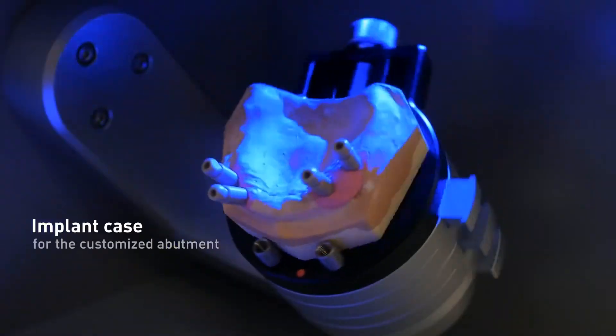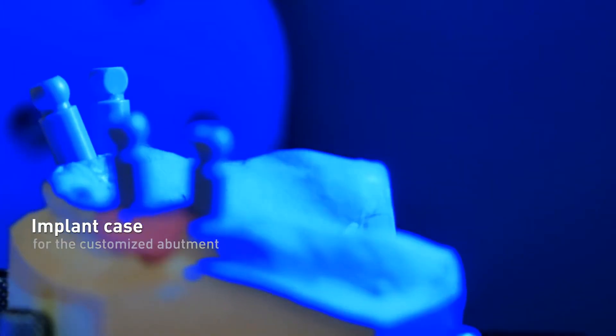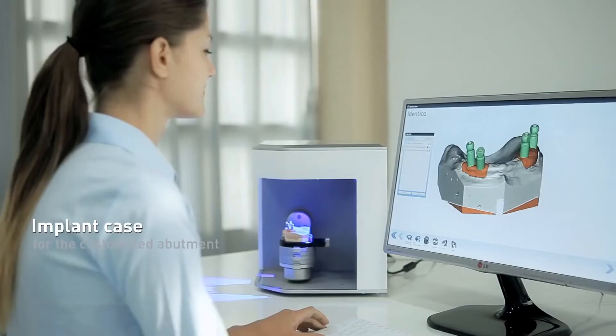Operators will capture highly accurate scan data of an implant model to quickly and easily design a custom abutment through any CAD program.